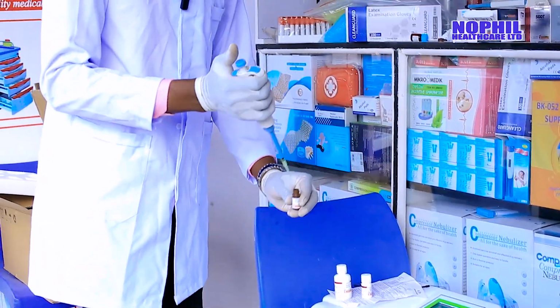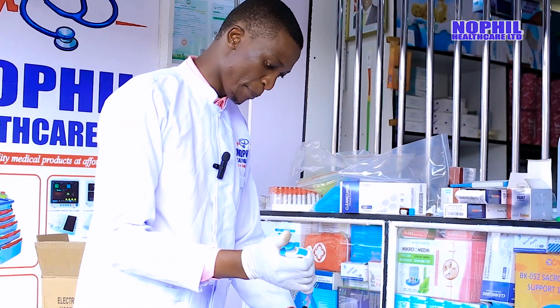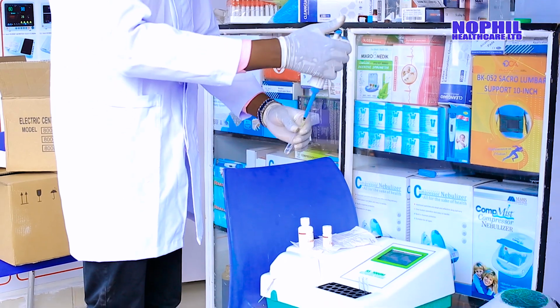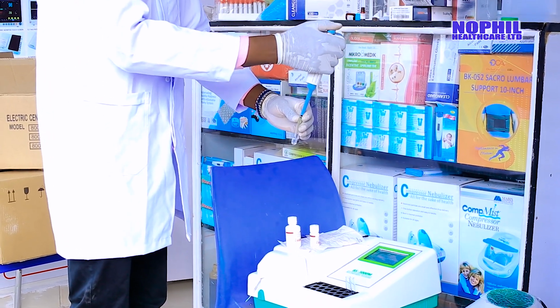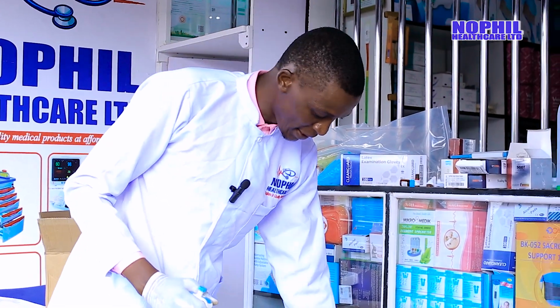Using this control of ours, you just click like that. You pick 100 micro of our sample. Then like that, this is our sample. In our case, we are using the control solution. You just mix it together. Now we have our sample and reagent at the same time.